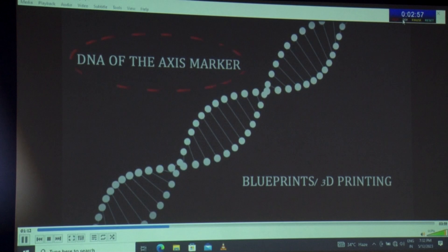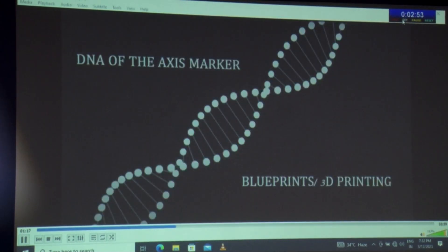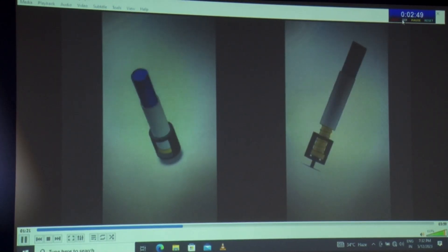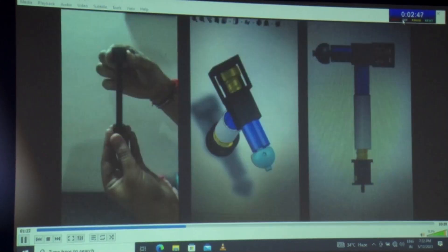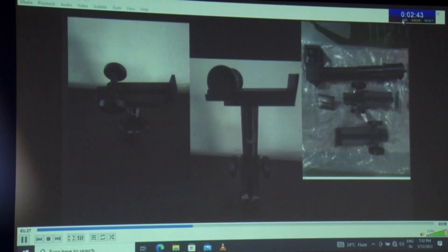This was the first hand-drawn diagram of our toric marker. We further started doing 3D printed models. As you can see, the 3D printed models became bulkier every time, so we finally settled with a shaft-within-a-shaft design — that is, the IV stand design.